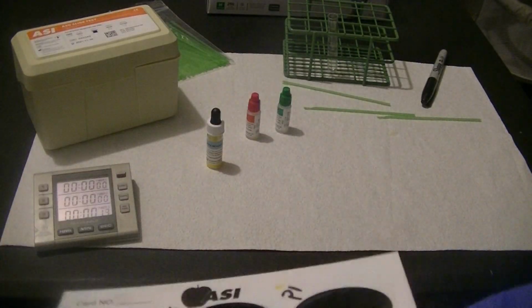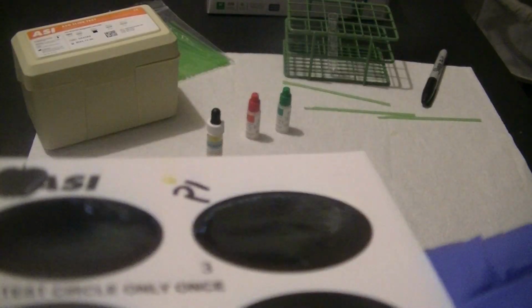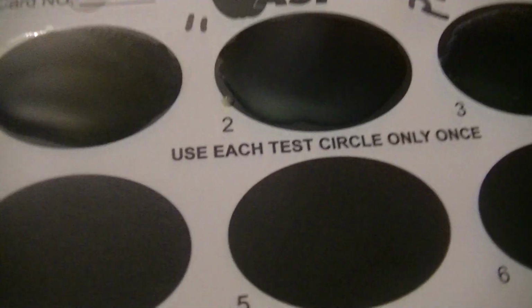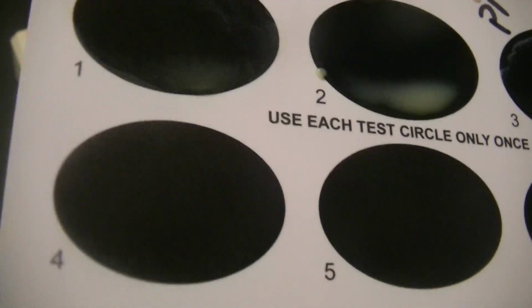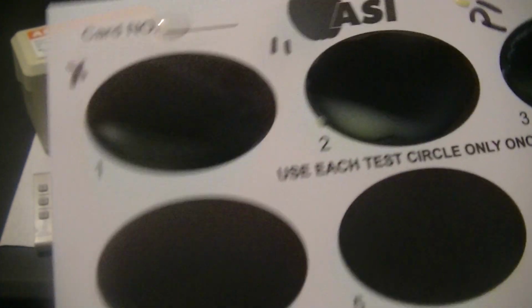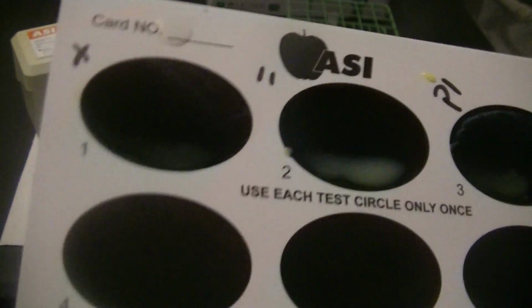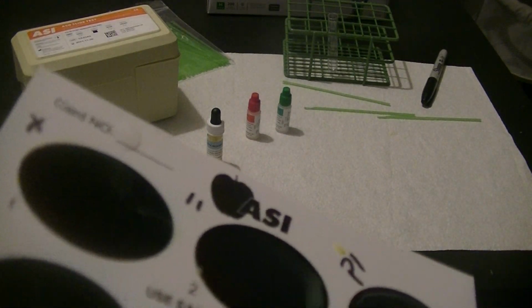So we would report our patient as positive, our positive control is positive, and our negative control still looks negative. It's just a creamy yellow suspension. No agglutination has taken place. So since we have artificially attached streptolysin O antigens to a latex particle in this test, this is a passive agglutination test.